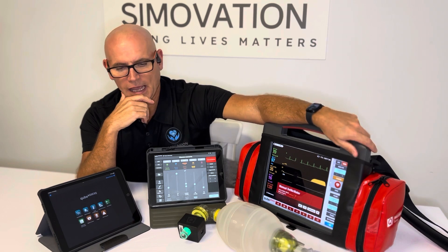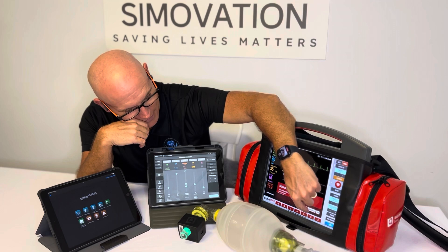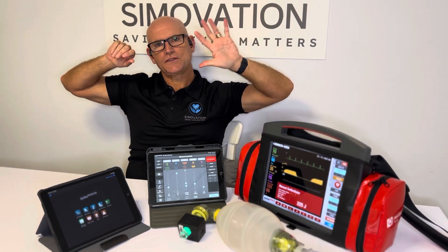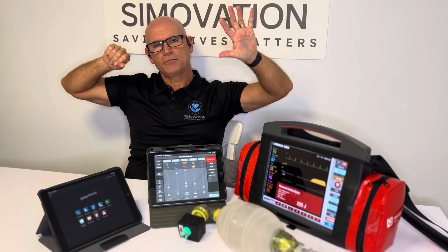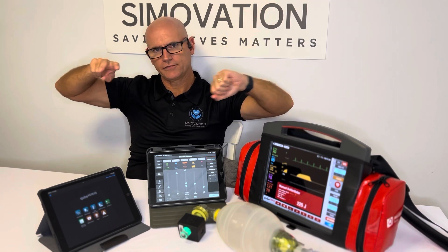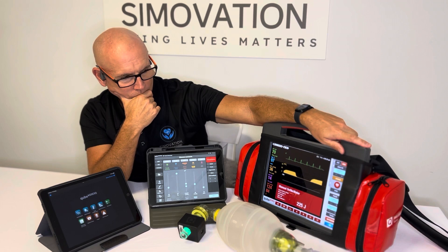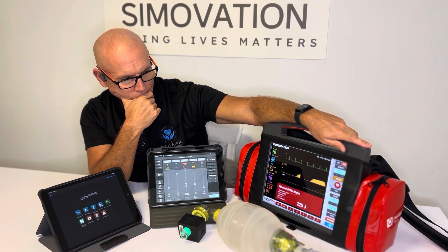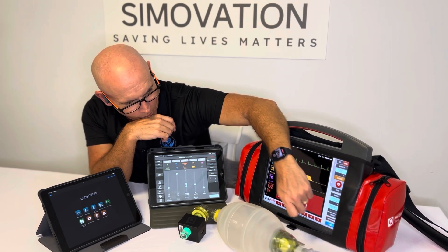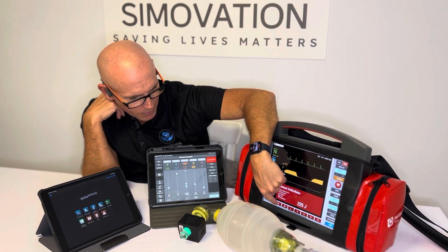For example, if I pick one — I've changed that to 30 to 2 — then you'll get the last five compressions, the tone will change for them, and then for the two breaths you'll get a different tone as well. Really nice feature. Down at the very bottom we have the home icon or button, so if ever you want to get back to the home screen, that's all you depress.